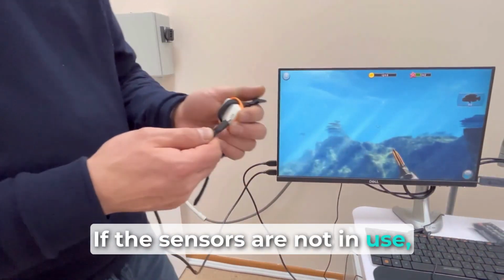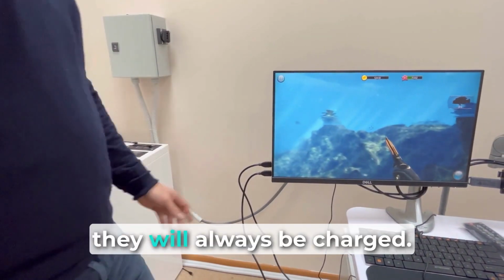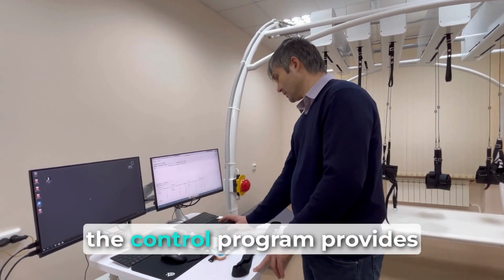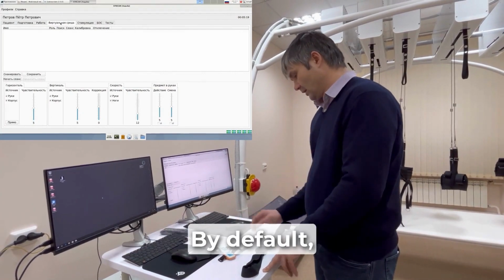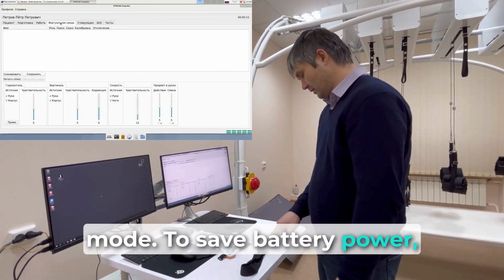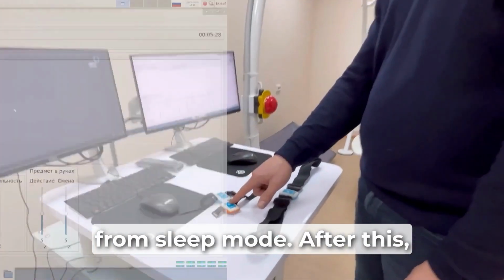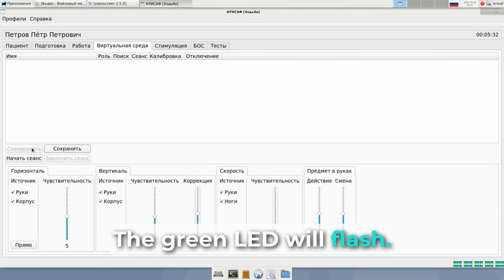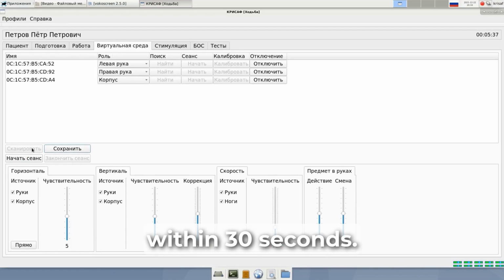If the sensors are not in use, we recommend keeping them charged at all times, so that if necessary, they will always be charged. To work with the sensor, the control program provides a virtual environment tab. By default, the sensor is always in sleep mode. To save battery power, you need to press the button on the sensor to wake it from sleep mode. After this, it will wake up. The green LED will flash. The sensor will be available for connection to the program within 30 seconds.